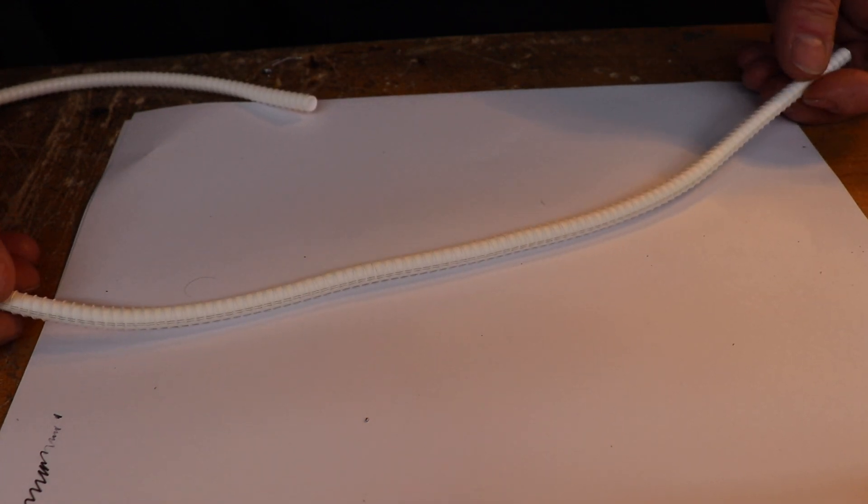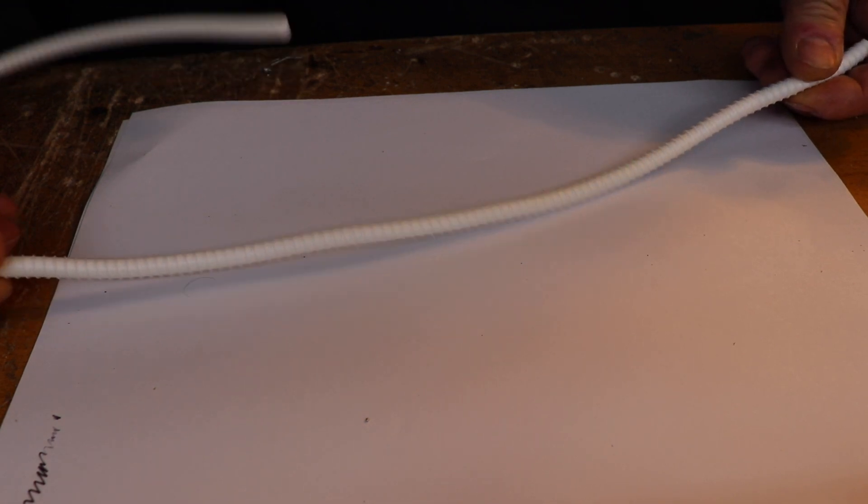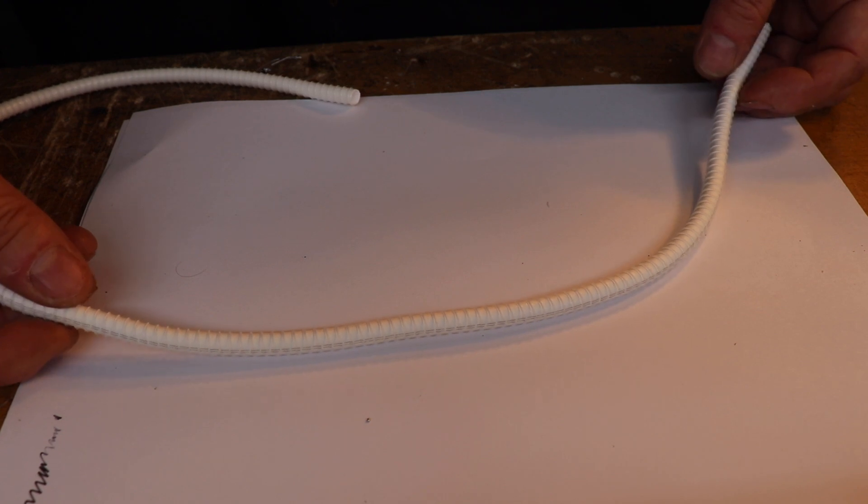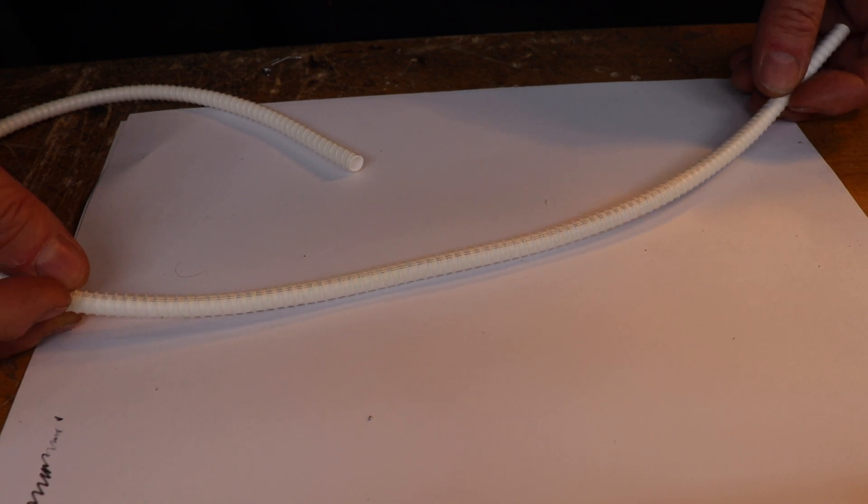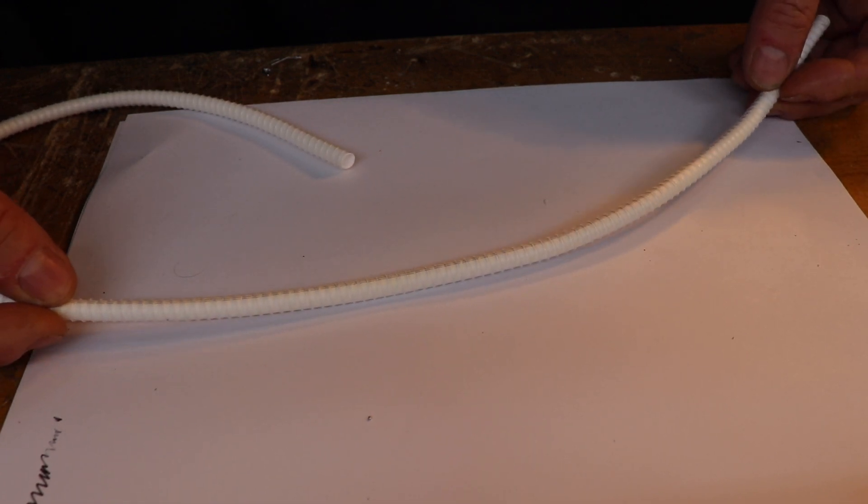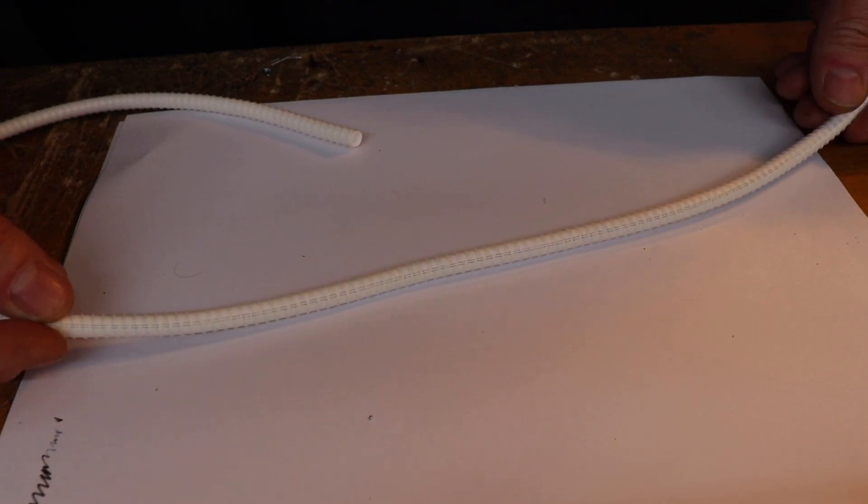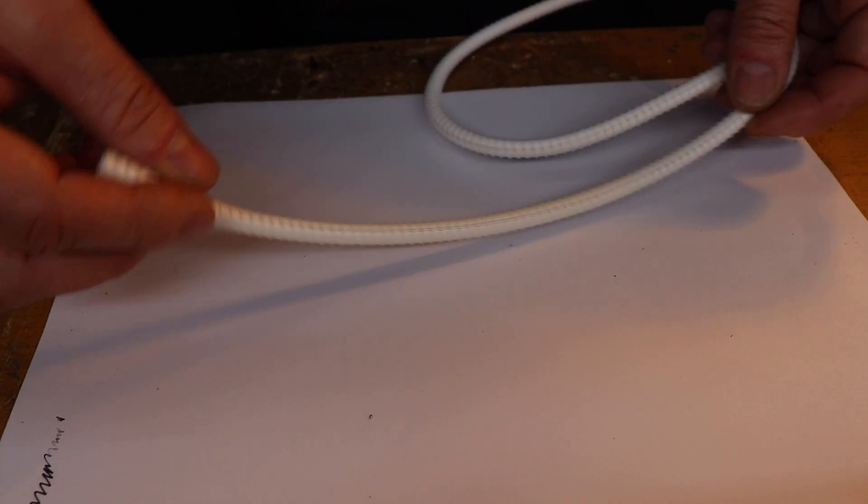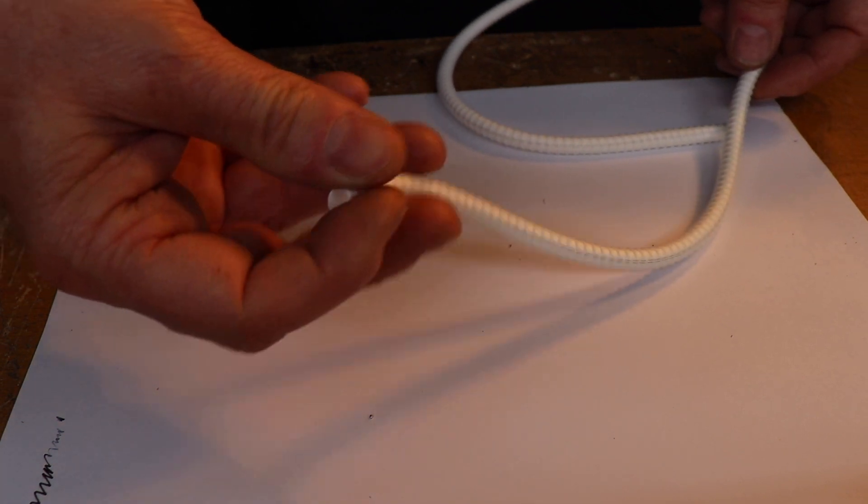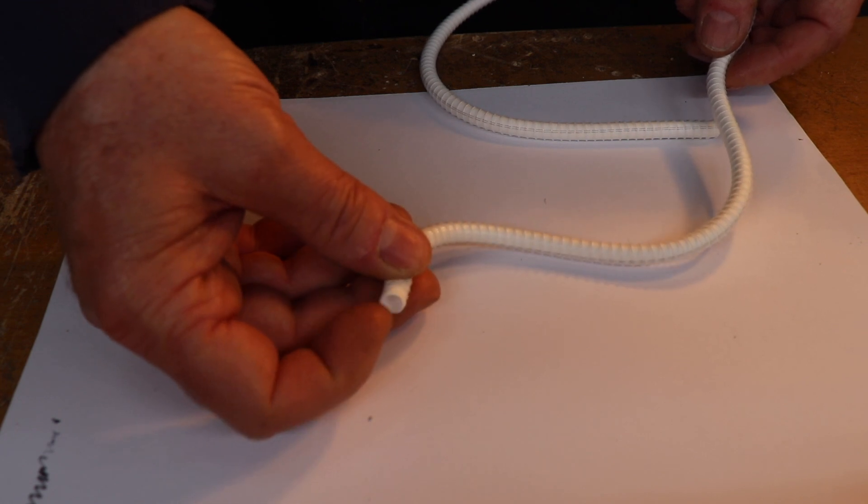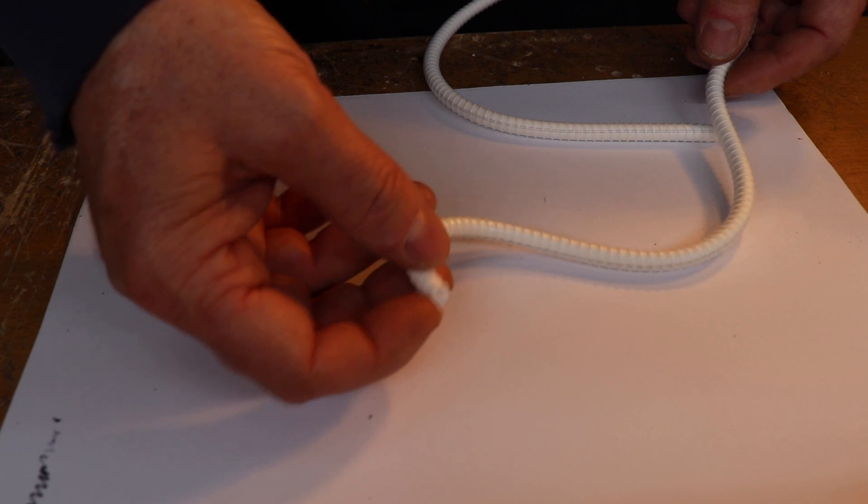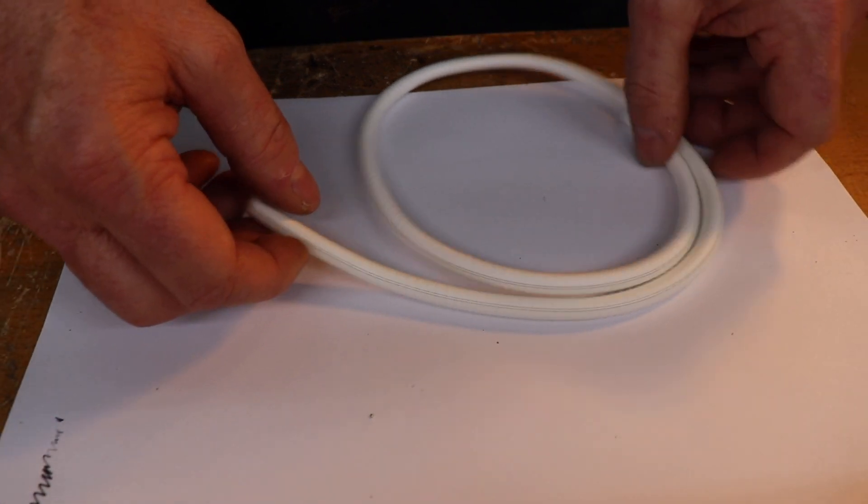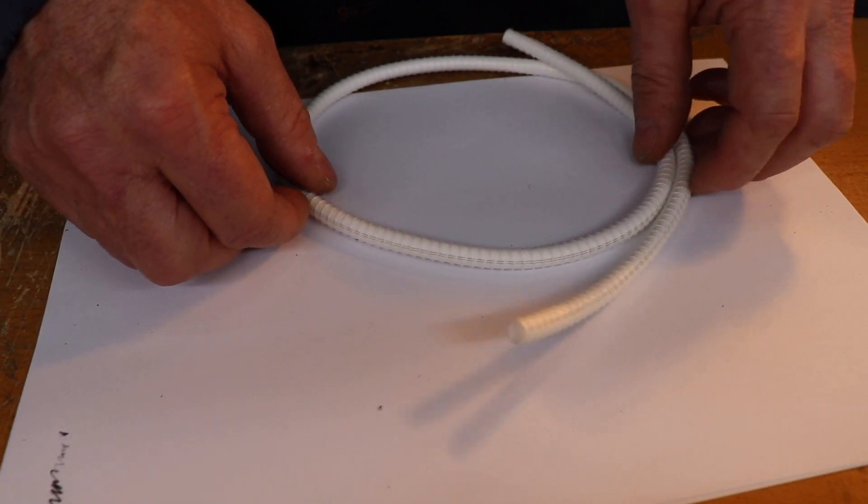These things, they're not as good as using the patient's own vein, but sometimes if you haven't got a vein for a bypass then you might consider using this piece of prosthetic graft. This is a PTFE graft. It works reasonably well. It's not brilliant when you want to do a bypass to below the knee. The patency, in other words the time for which it stays open, isn't terribly good. But as I said, there's not really much to look at that. It's the same sort of material that a plumber would use to thread the various pipe work that you use if you were repairing the kitchen sink. Vascular surgery is basically plumbing but on the human body. Yeah, it's just a little tad more complicated, but it's more or less what it is, just basic plumbing.